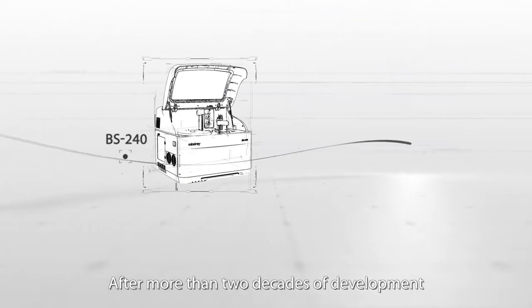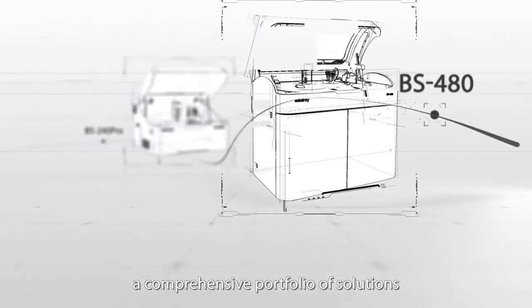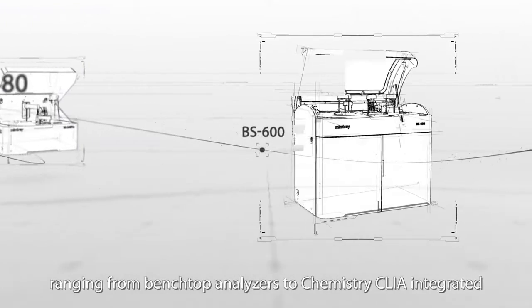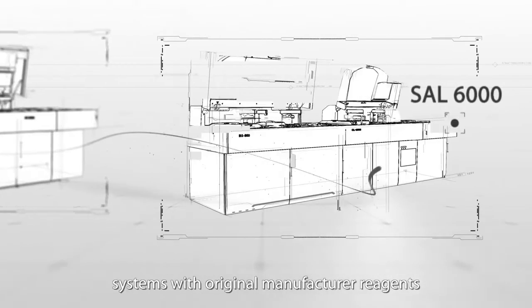After more than two decades of development, MindRay Clinical Chemistry has established a comprehensive portfolio of solutions, ranging from benchtop analyzers to chemistry CLIA integrated systems with original manufacturer reagents.